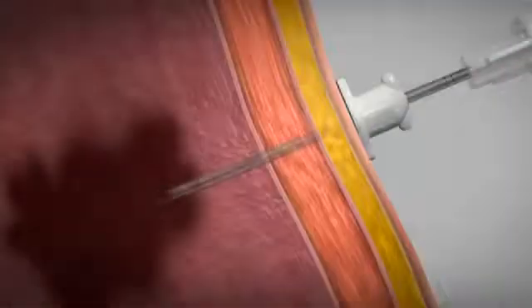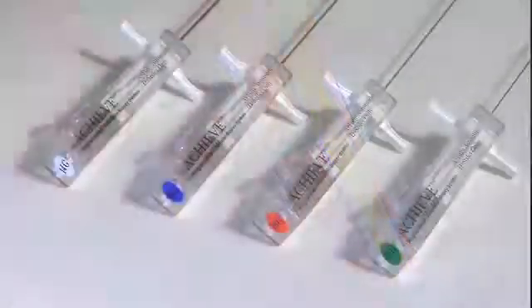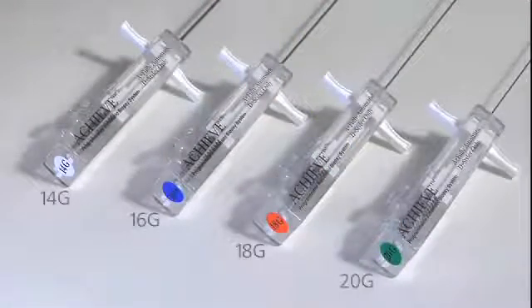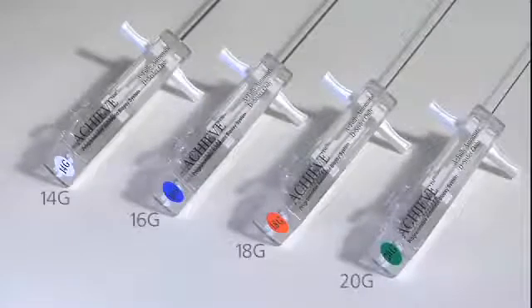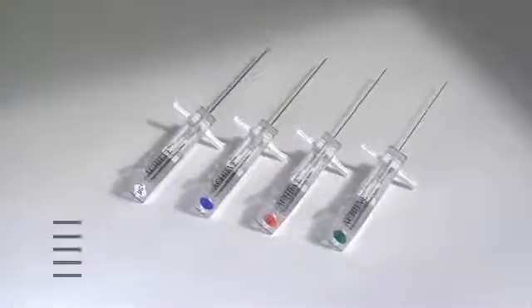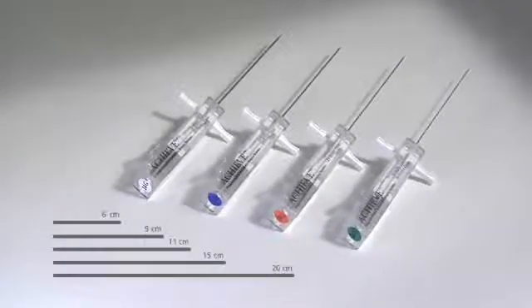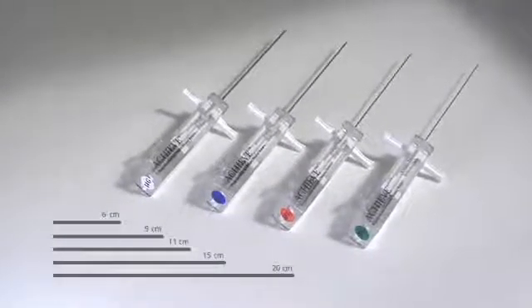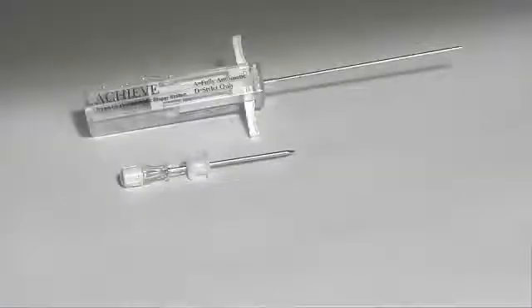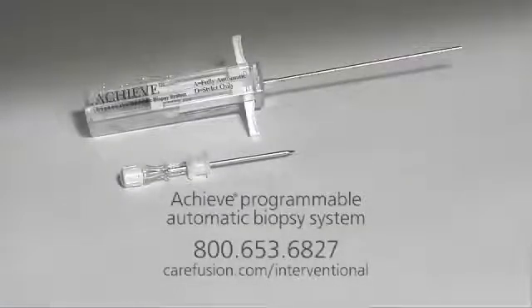The Achieve programmable biopsy system is available in 14, 16, 18, and 20 gauge sizes. Each size is available in 6, 9, 11, 15, and 20 centimeter lengths. The Achieve programmable automatic biopsy system is the one solution for your soft tissue biopsy needs.